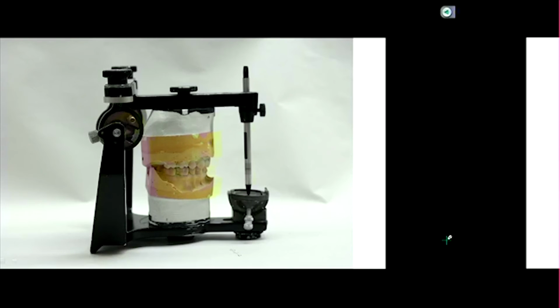Anatomically, maxilla or mandible, where is your condyle located? In which arch? Mandible. Okay, the condyle is located on your mandible. So if you took these apart, where is the condyle, on the upper or lower member of your articulator? Lower. So this simulates your mouth or your head. So remember that as an Arcon articulator.